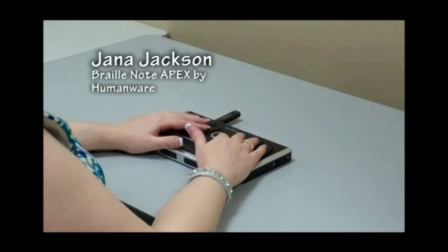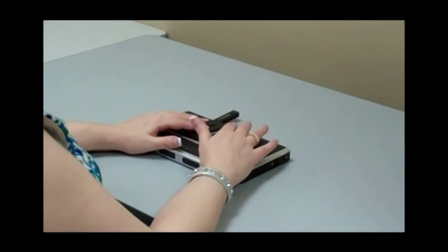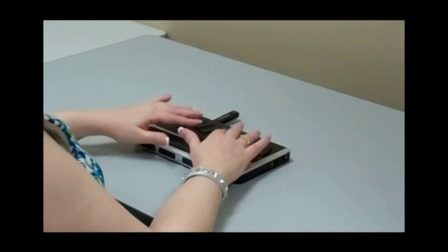Hi, I'm using a piece of great equipment today called the BrailleNote APEX. Basically, it is a computer in and of itself, like what people used to call a PDA, and it's very portable, as you can see, and it has speech and Braille output, so I can either listen to the speech or I can read.